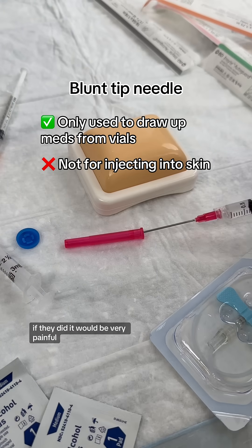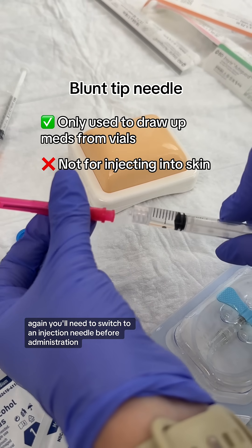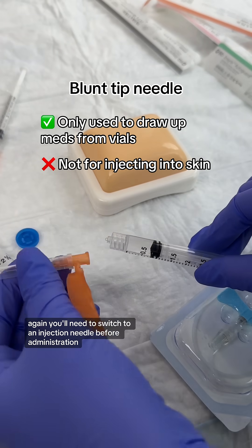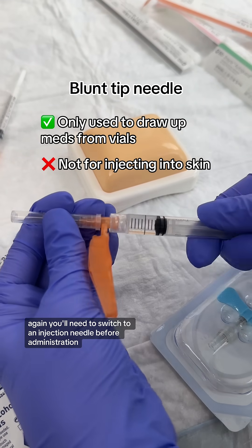If they did, it would be very painful. Again, you'll need to switch to an injection needle before administration.